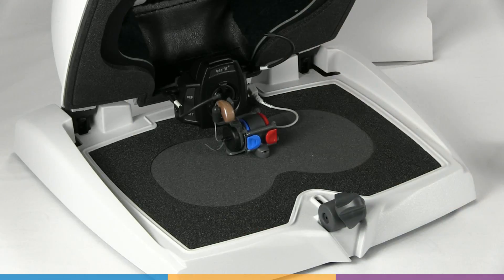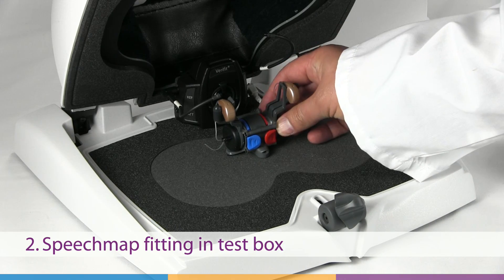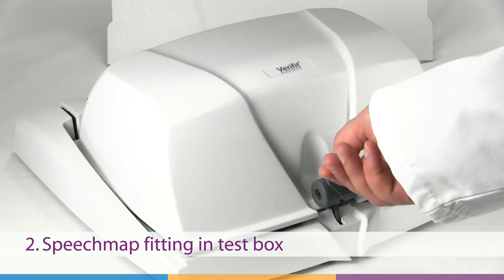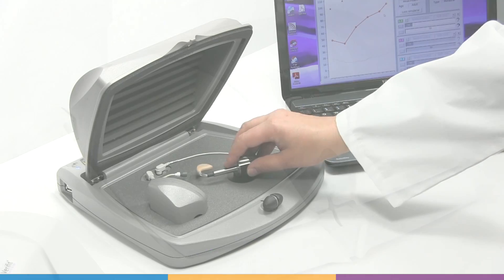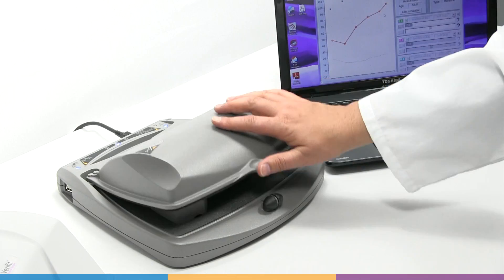Two: to allow hearing instrument fitting in the test box. The RECD is applied to the coupler microphone measurement so that hearing instrument performance in the coupler can be predictive of performance in the real ear.